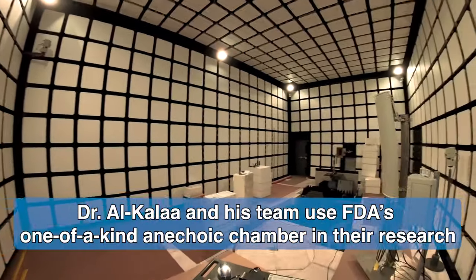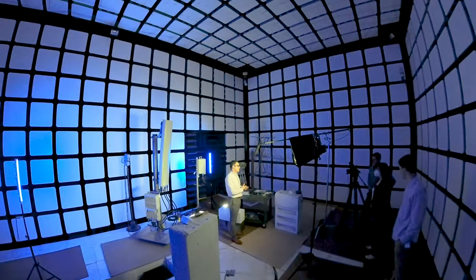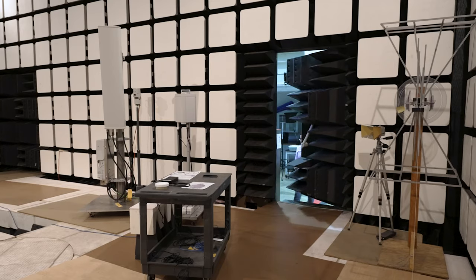We're standing in an anechoic chamber, which is a test environment that we use to run our 5G experiments. The purpose of this test environment is to give us a quiet environment.